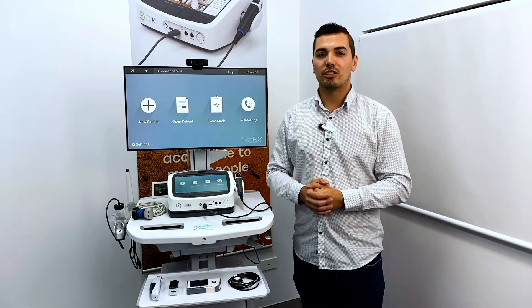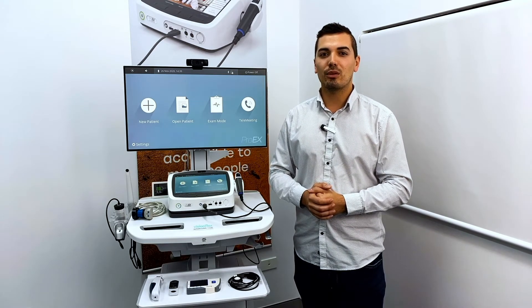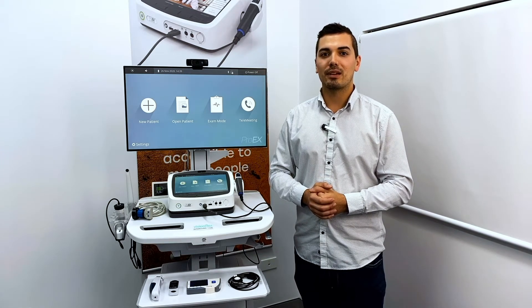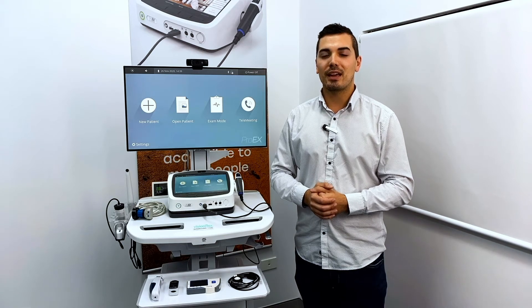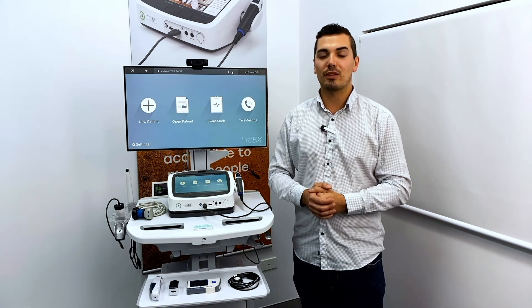You can show a doctor on the far end of a call real-time images, videos, and clinical data while on a telemeeting, as well as previous data captured and saved in the patient database from previous examinations.